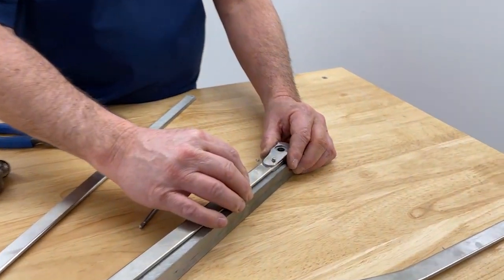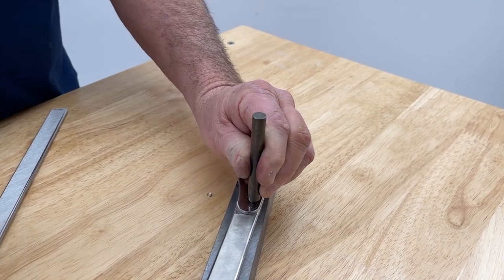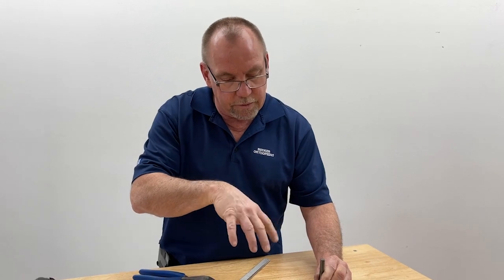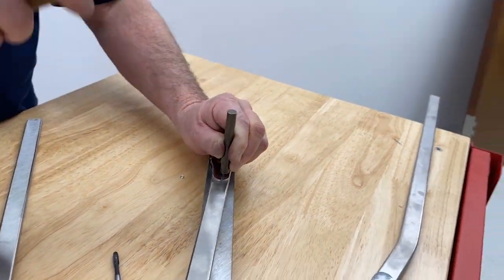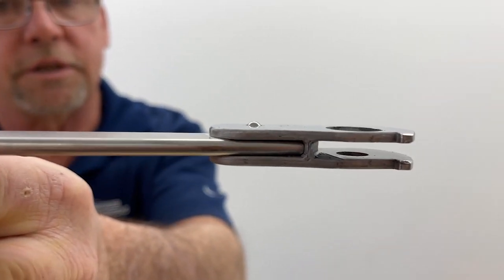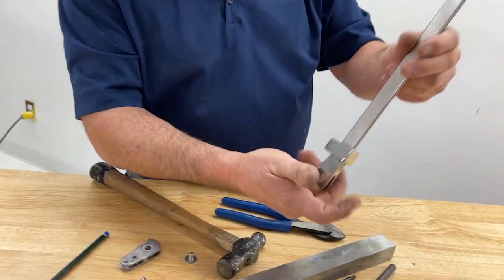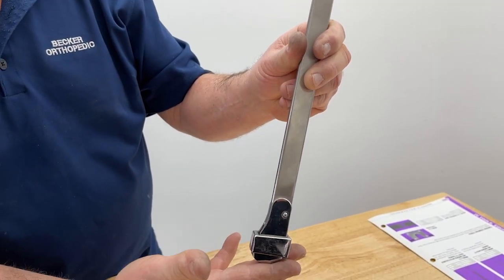Set a ball bearing on top, and we'll use our large corking tool. The important thing here is not to hit it too hard. Try to hold it level and swedge the ball in so that it's centered and swaged evenly all the way around. Now the ball is installed — you can see that it stands proud of the joint, it's manipulated no problem, and it catches the ring. All set.